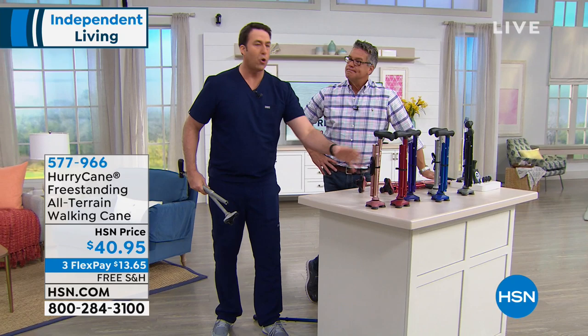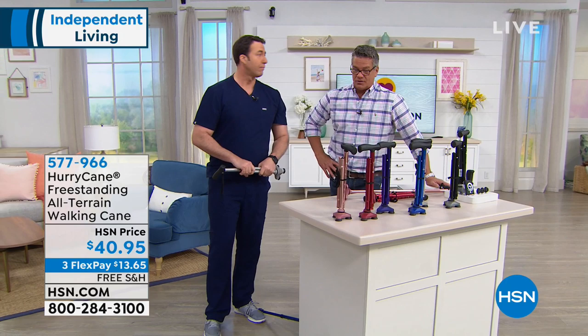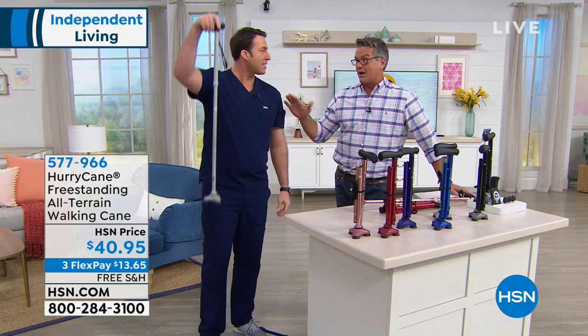Get your HurryCane home — be safe. Up to 350 pounds, and most canes can't handle that. We have the rollator coming up in a bit, which is one of our favorites, and we have the new blood pressure monitor too. When we get to that, we can continue on with why and how.